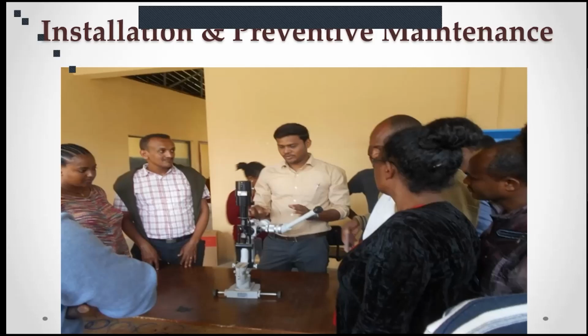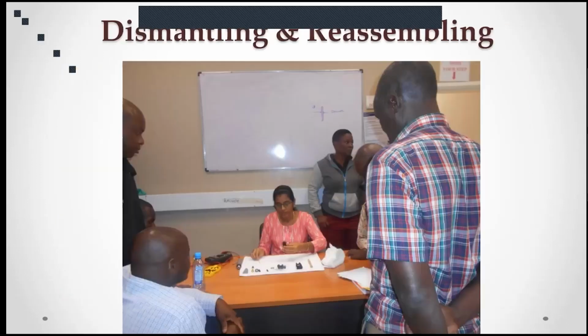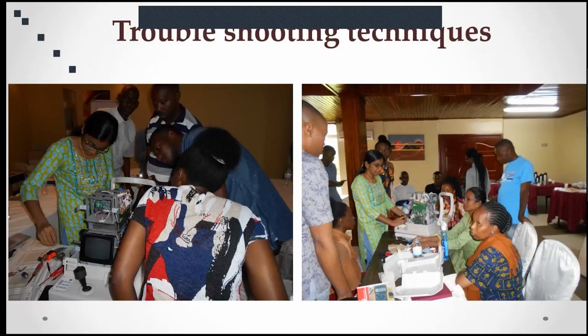For the computerized higher-end equipment, we give them an overview of that particular equipment and its care and maintenance. And we teach them how to dismantle the basic equipments like direct ophthalmoscope, indirect ophthalmoscope, streak retinoscope, slit lamp, microscope, and so on. How to dismantle them, how to clean them, and how to reassemble them to the original condition. And we also teach them troubleshooting techniques. What are the problems we usually come across? Based on that, we teach them how to troubleshoot the common issues.